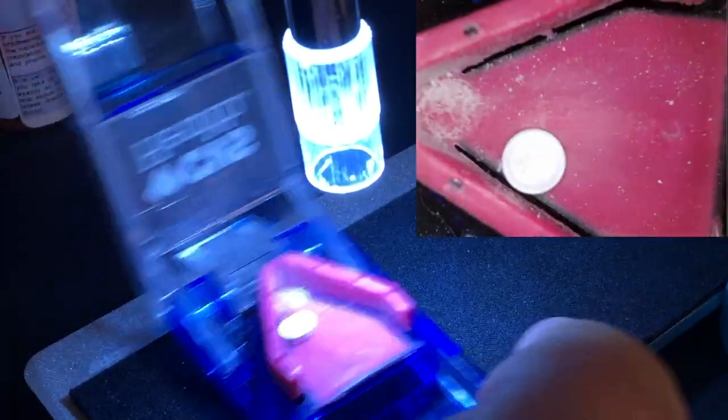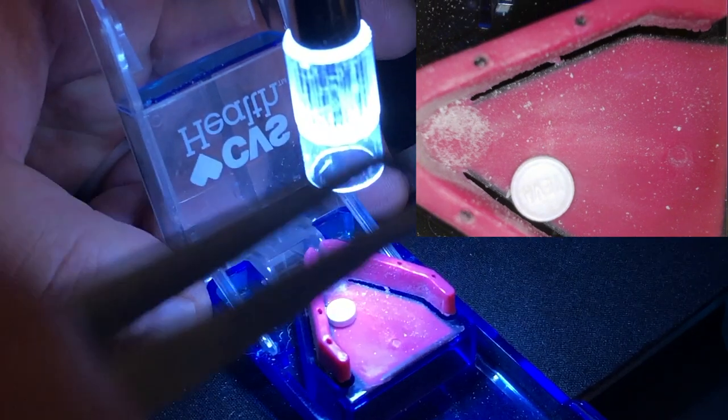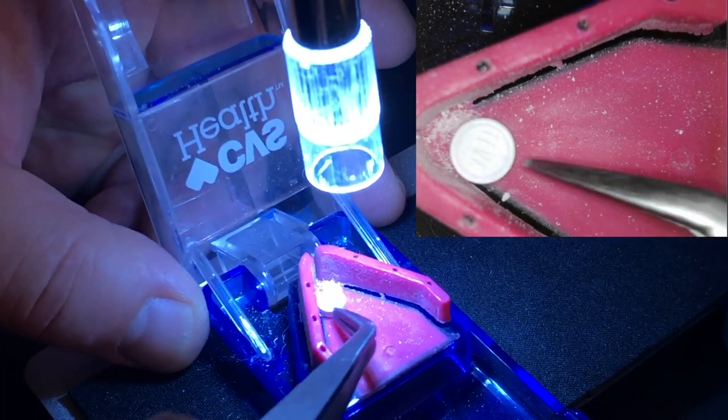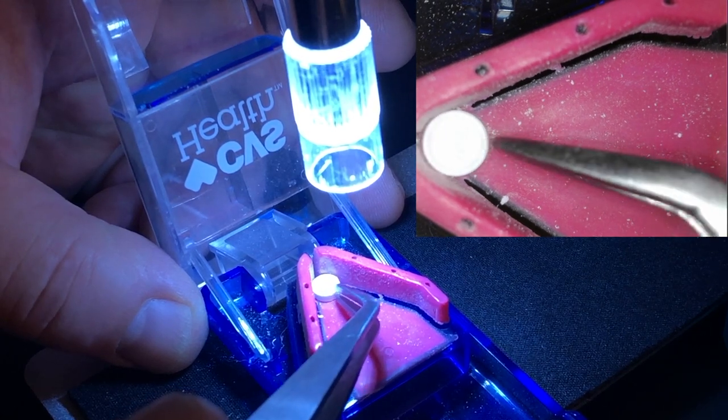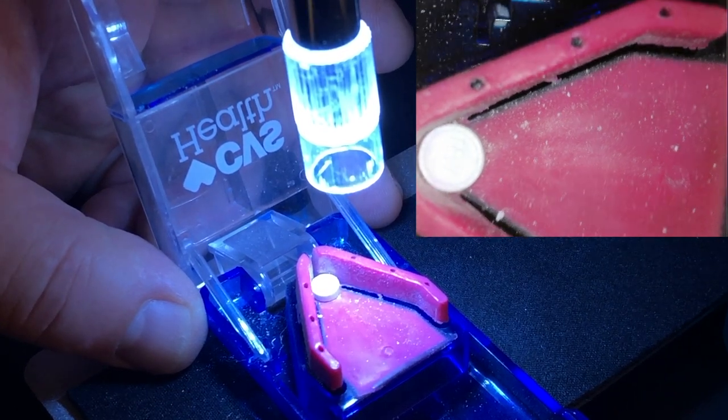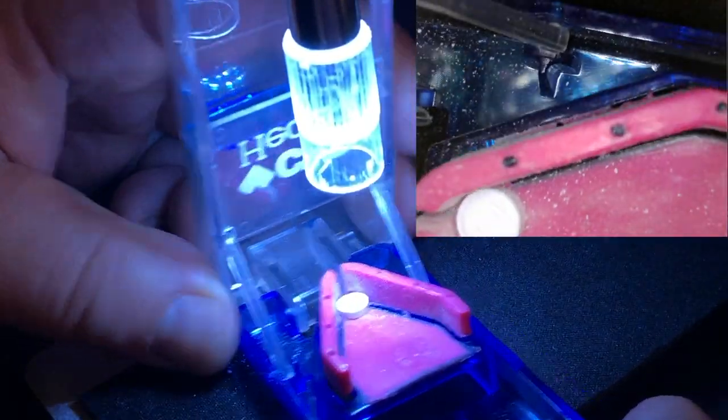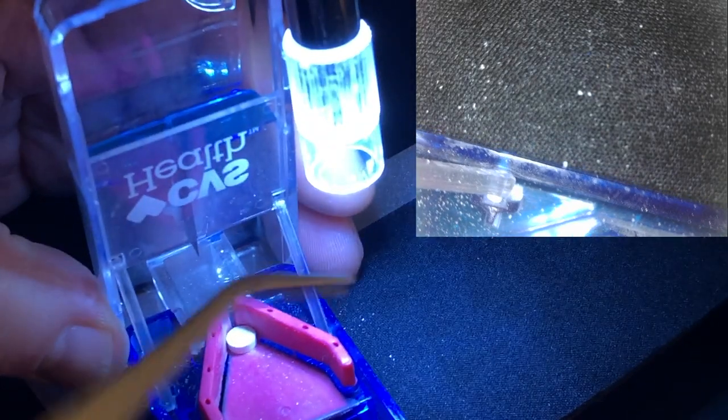I also found what helps is we have like a lot of residue from older pills back here. If you take those out every once in a while and clean this thing, that would be also helpful. One looks very dirty. Because this little microscope camera picks up on everything here.